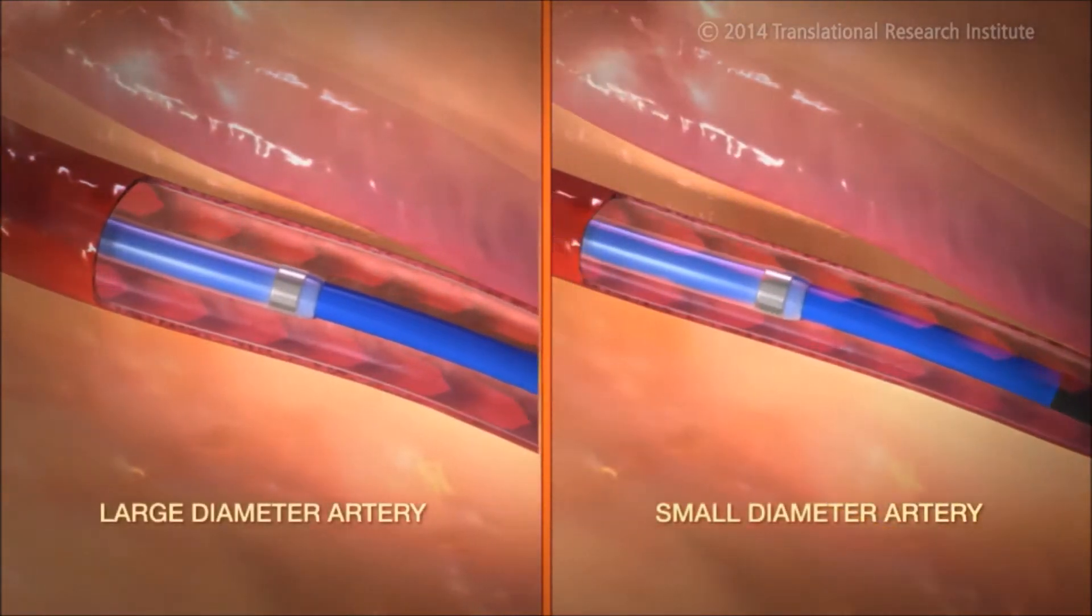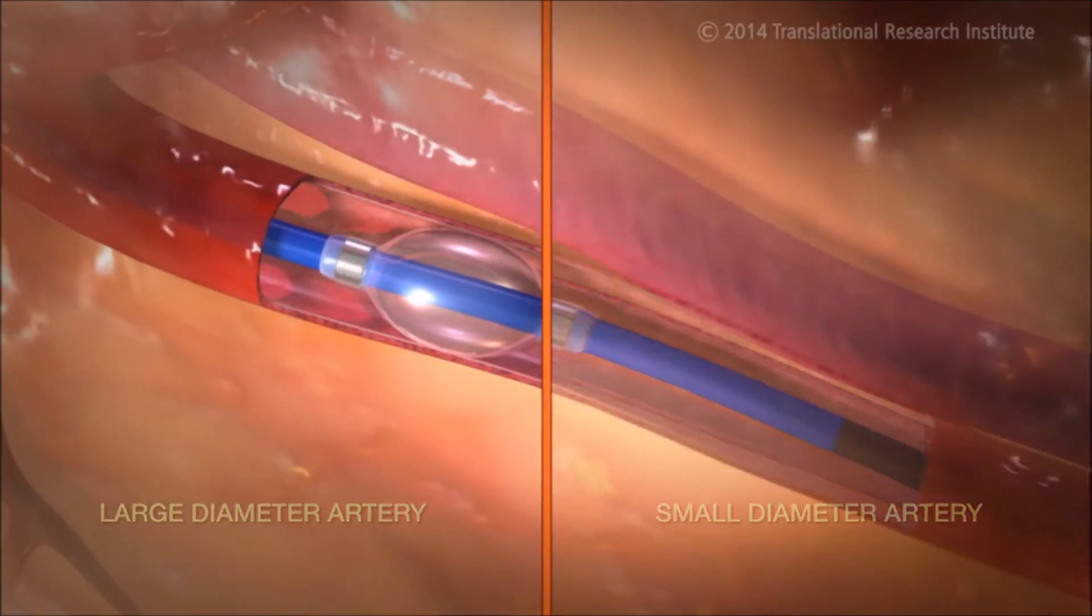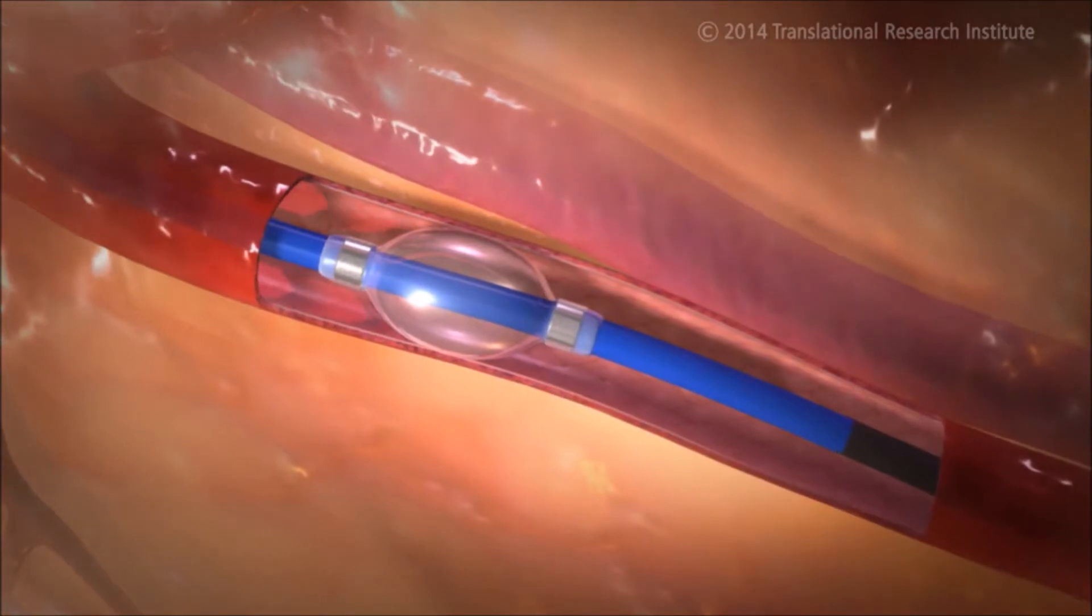The balloon accommodates a variety of vessel diameters through its ability to expand up to 4.5 mm, thus reducing the need for multiple catheters for different patients.